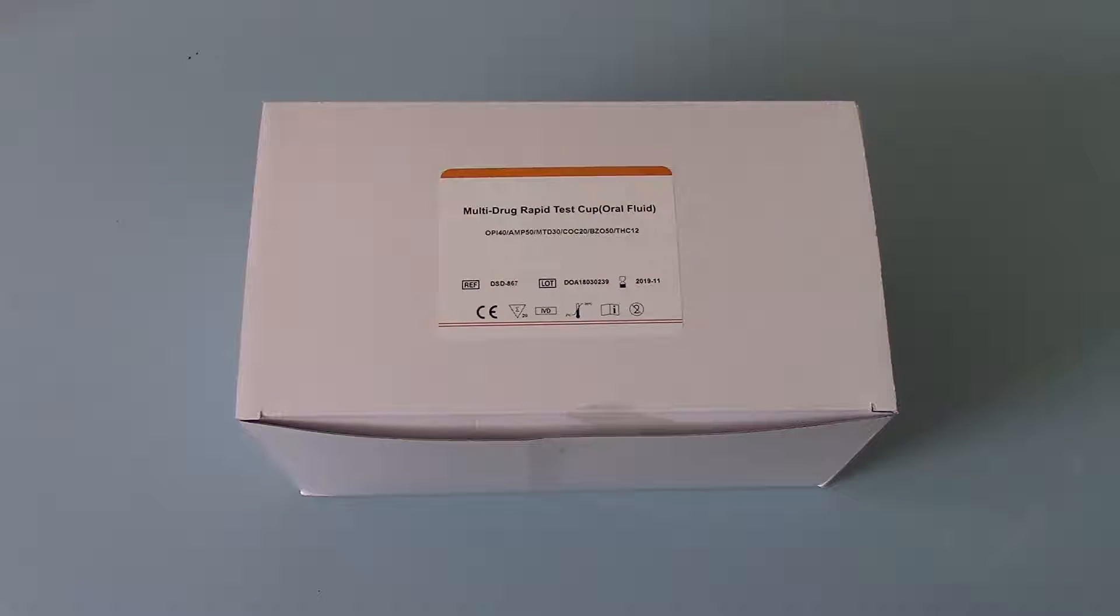Some will have methadone on, others will have an identical combination with the transfer to methamphetamine. And we do have also a combination without cannabis but with buprenorphine on available occasionally to order.